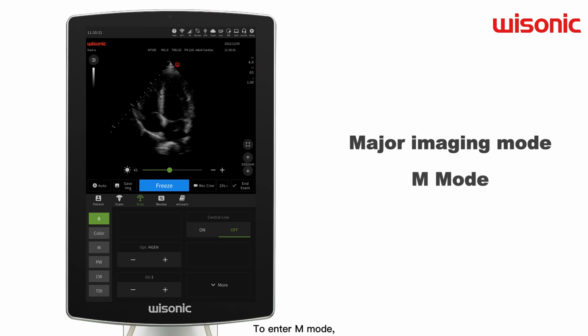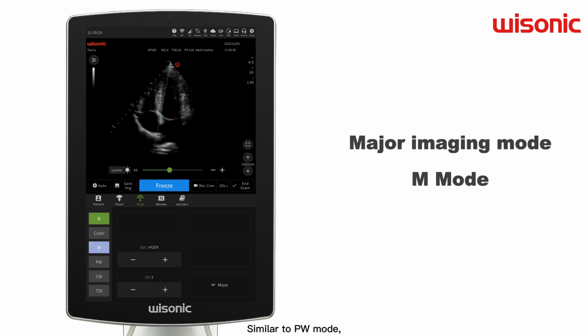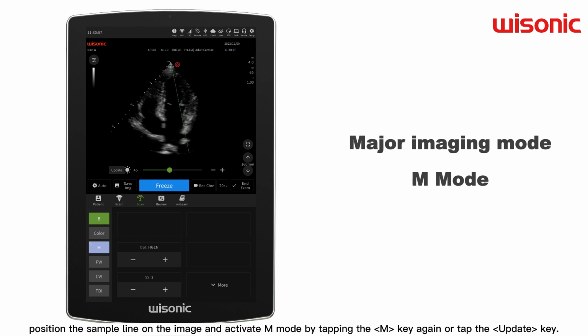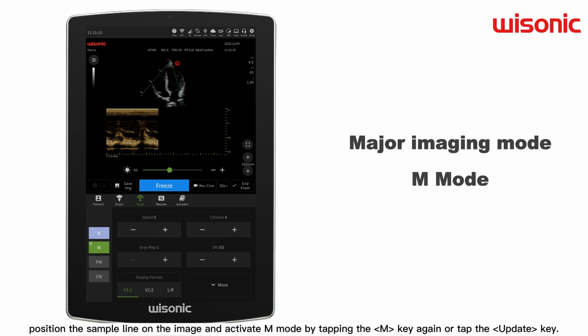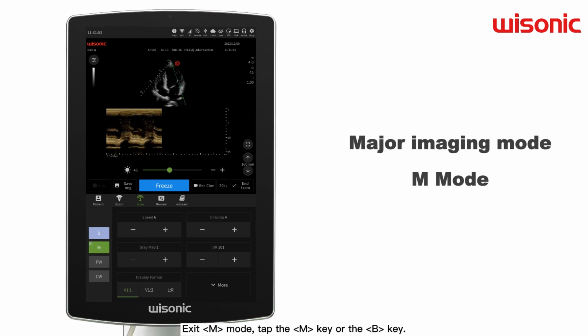To enter M mode, press the M key on the left side of the touchscreen. Similar to PW mode, position the sample line on the image and activate M mode by tapping the M key again or tap the update key. Exit M mode, tap the M key or the B key.